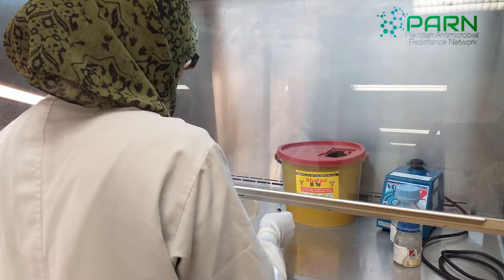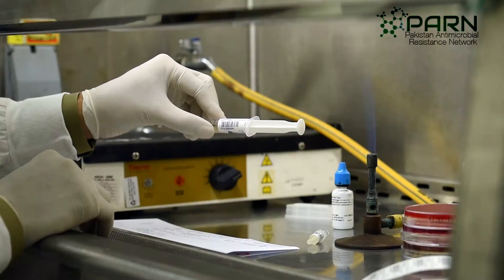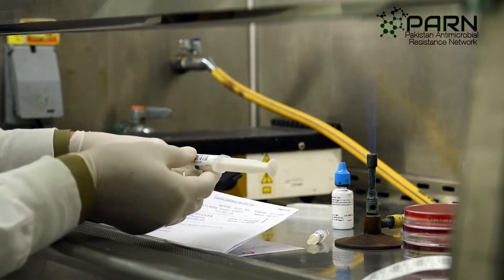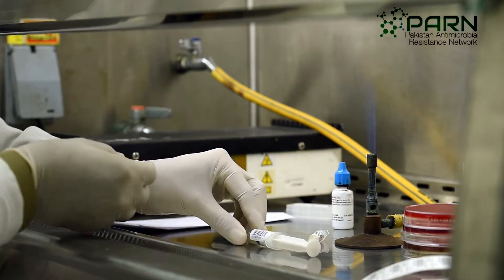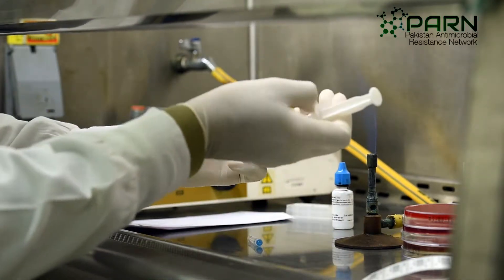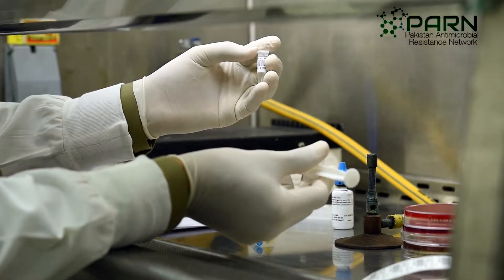CSF specimens received in the laboratory should be processed as soon as possible and with utmost care. Process the specimen inside a biosafety cabinet. Verify the patient details on the container. Observe the appearance of the specimen and note down if it is clear, cloudy, or bloody in appearance.